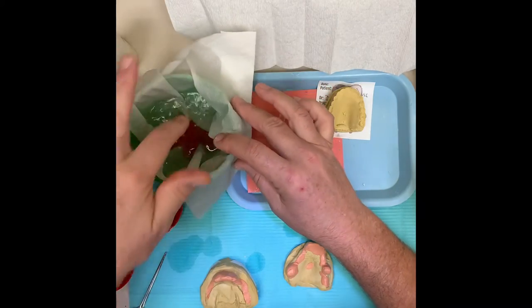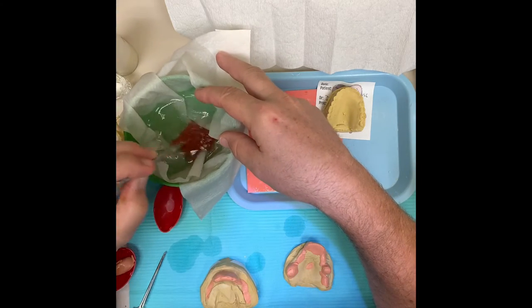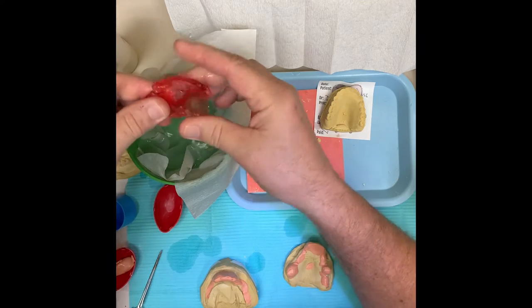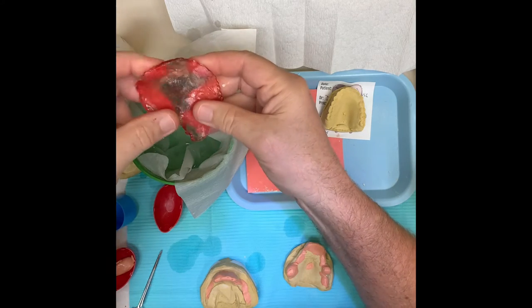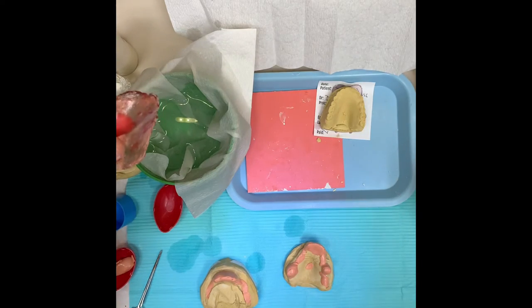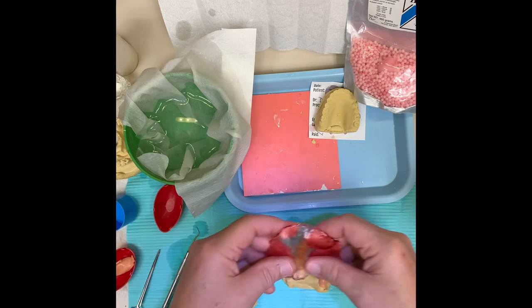This is what you want to look for. The water is pretty hot to begin with, and it was in there for about a minute. I got impatient so I went ahead and microwaved it for about 30 seconds. This is what you want to look for - it needs to be clear and moldable. This is a thermoplastic material, so it's translucent when it's hot and it turns opaque when it's cold. You'll see it change color as it cools.